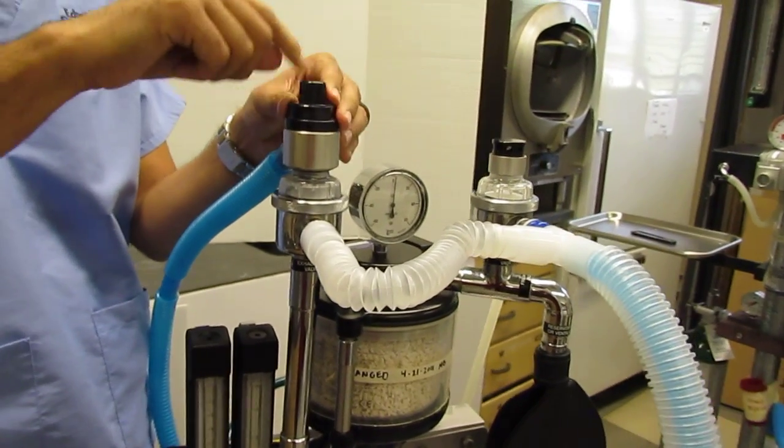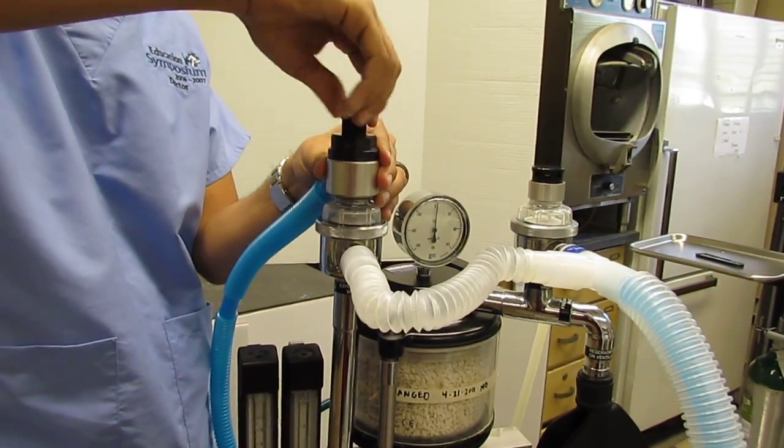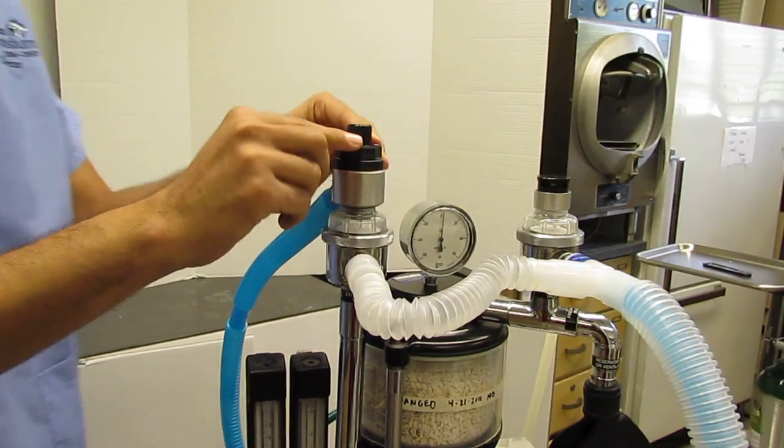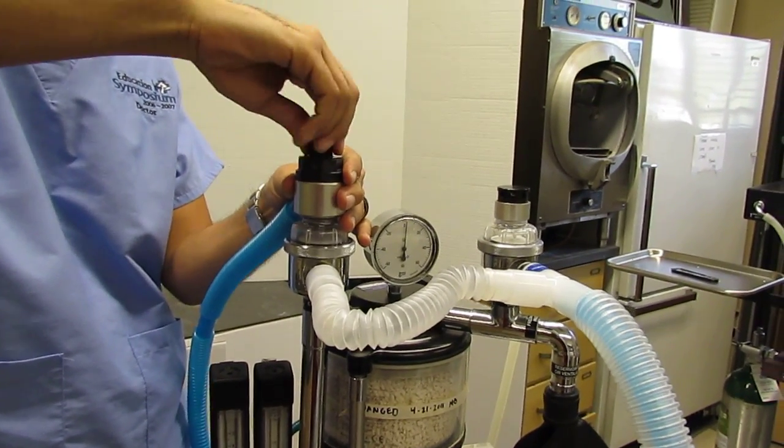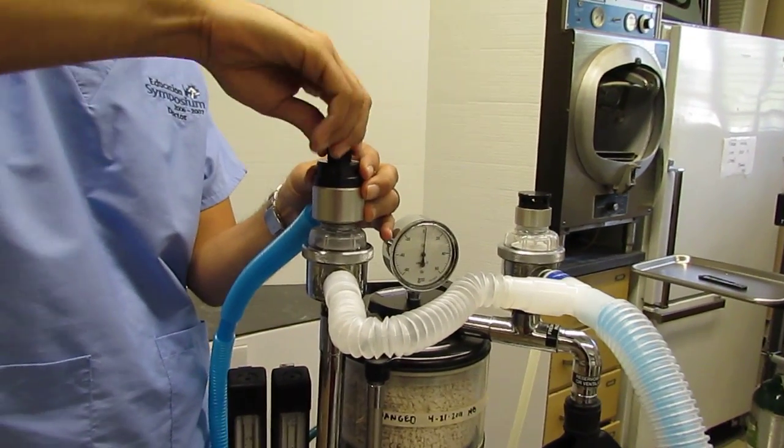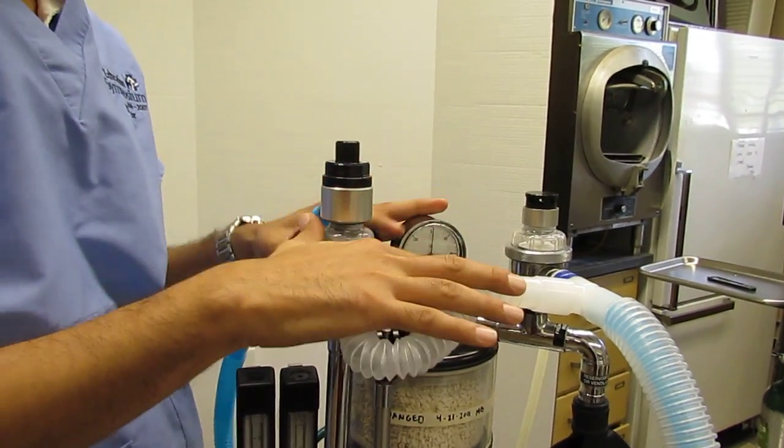other thing that's featured on here is this valve here. This is referred to as the positive pressure releasing valve, sometimes also called the pop-off valve for short.